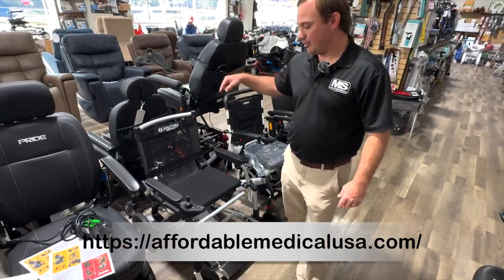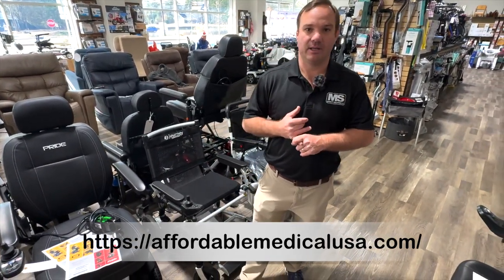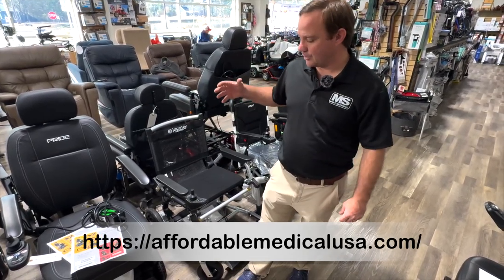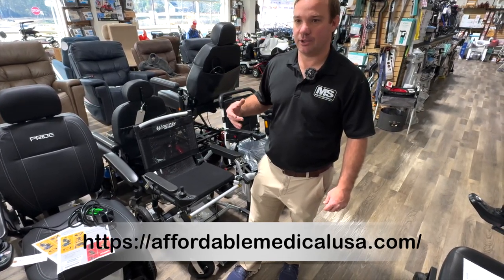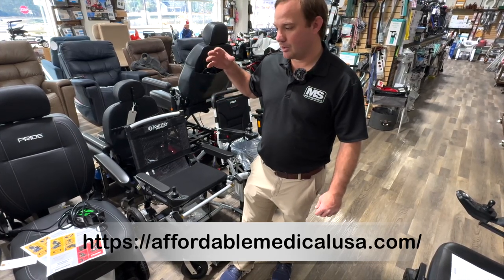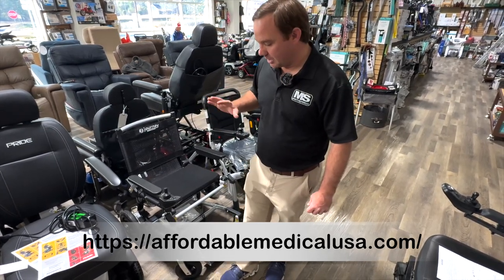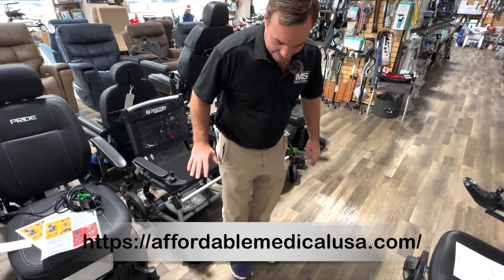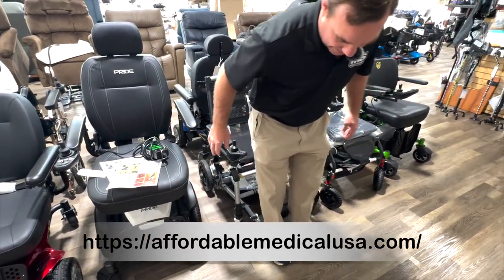We brought Journey in. I'll tell you why I was always against Journey — because they always competed against us. But I brought them in because I felt I needed to. They came to me and said they really wanted to get into our store. They had a guy come by and we ended up getting two or three products, and we might bring more. What I like about this chair — and there are things I don't like — the key thing is getting into it. If you have a hard time pulling the footplate up and down, their patent design is this mechanism here.